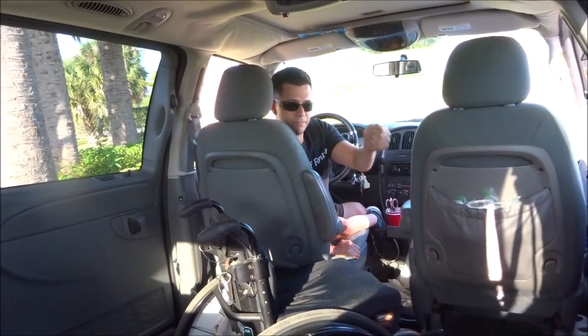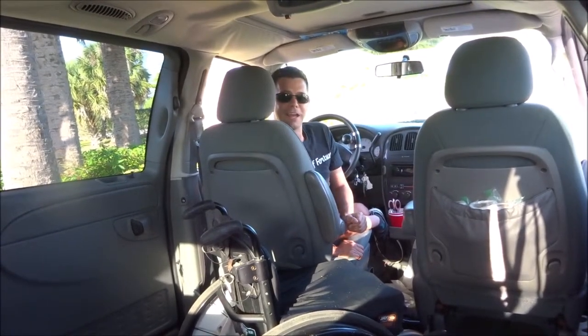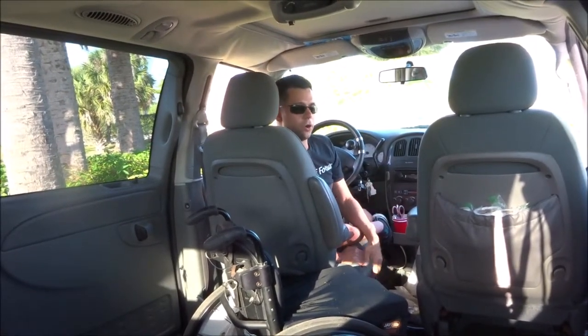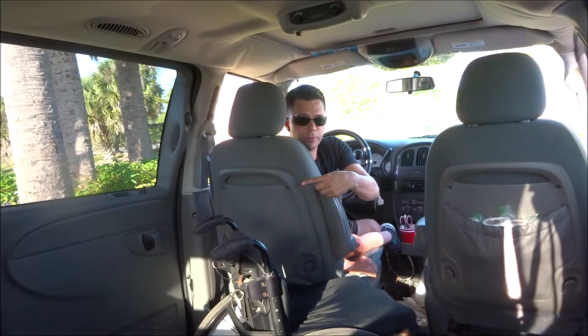And that is sometimes with electronics, they stop working. There have been times when I pushed the button for my ramp to go down or up, and the ramp just wouldn't do it. And when that happens, I have to do it this way. Otherwise I'm stuck there and I would have to call someone to pick me up, or call AAA or something. I've never actually had to be in that situation where I had to call one, and that's simply because I am able to use that door when need be. Now I would much rather use that door — this is absolutely only for emergencies, and I really would not do it if I didn't have to.